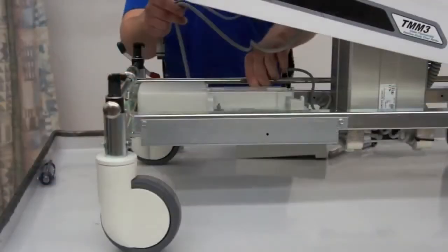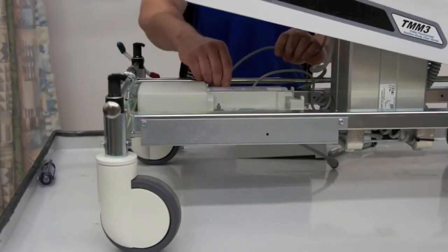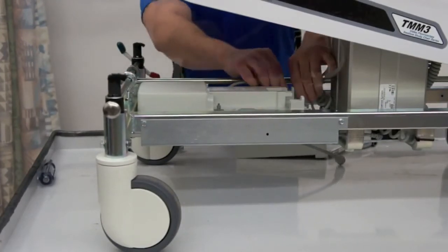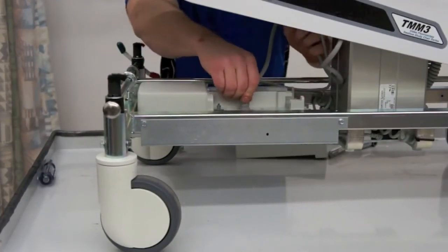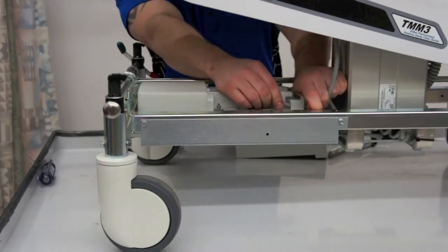Reattach your wires to the correct cords. Then secure in the wire restraints located on the top of the control box. Failure to retain the wires will prevent the control box cover from attaching properly.